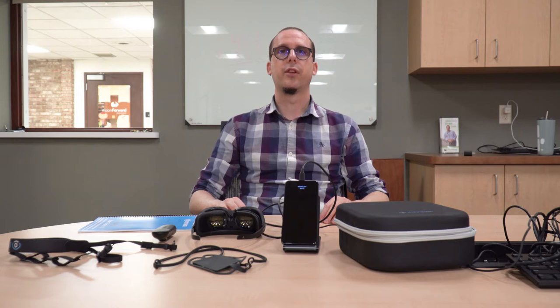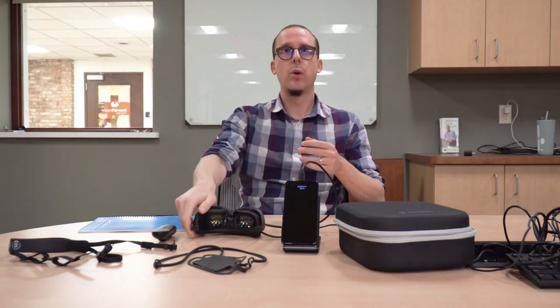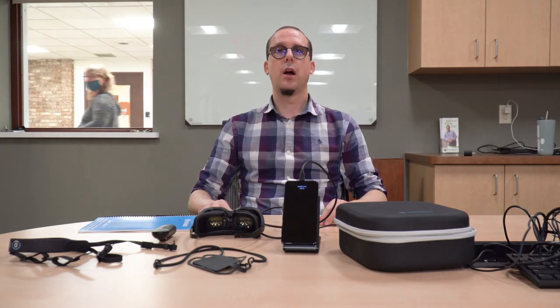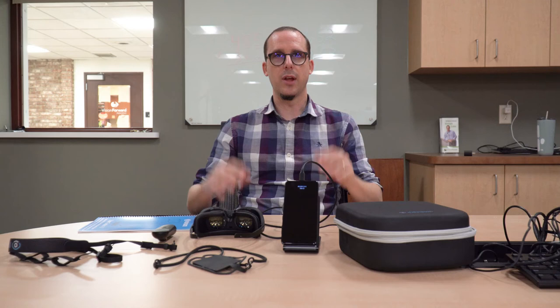Some of the other things we can do: we can access various settings for each mode, changing things like brightness and contrast. We can also turn on a flashlight on the front of the headset so in dark conditions we can see better. We can also turn off the screens individually from each other - with IrisVision Live it's just one big screen, but with this device we have two separate screens we can turn off individually, which is a great little feature. We can also adjust the interpupillary distance and various other things to get it set up exactly how you want.